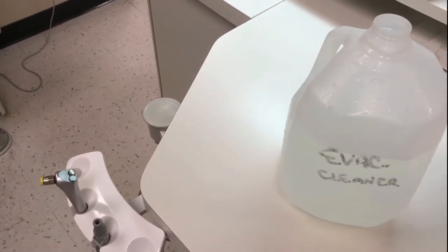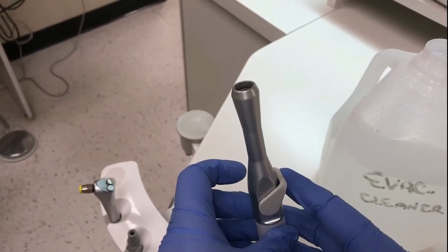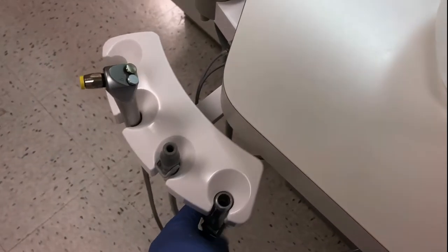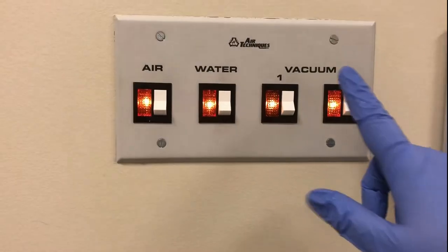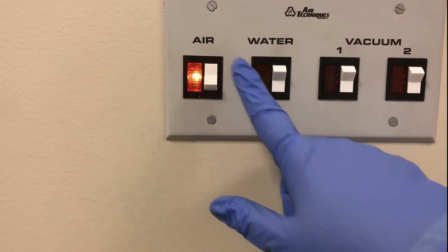Keep the equipment running to help dry out the lines. Bacteria need moisture to survive. By keeping the air running, it will help decrease the likelihood of bacterial growth. You can then turn off all of your master switches and then check the traps in your treatment room.